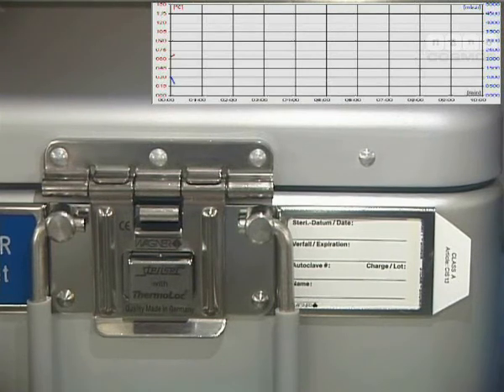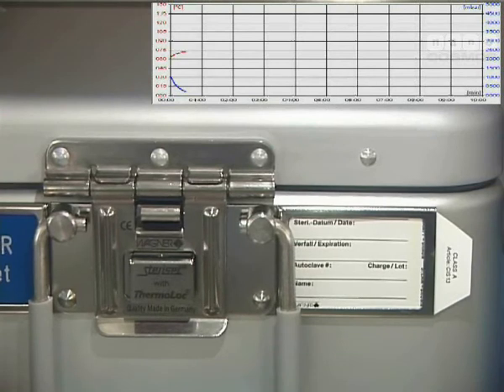What we see here is a sterilization container, a Steri-Set container exposed to an accelerated steam cycle. We see the blue line on top which represents the pressure currently going into a vacuum. We see the red line representing temperature.